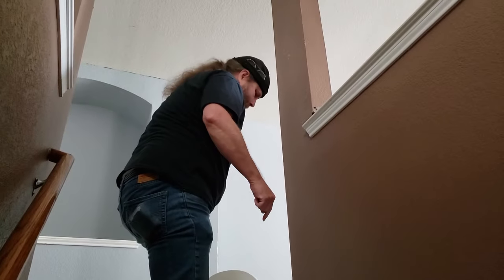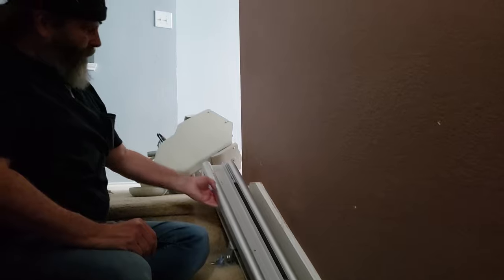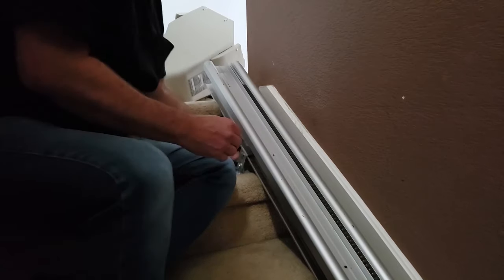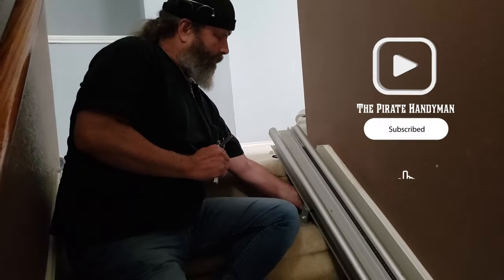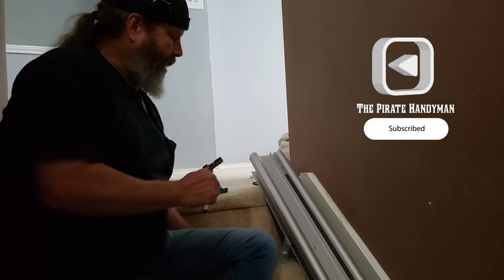So now we're going to have to disconnect all of the electronics up here. The next thing we have to do is take these rails off. There are bolts that are holding it on — we're going to have to disconnect these bolts. There are four bolts holding this down: two on the inside and two on the outside.